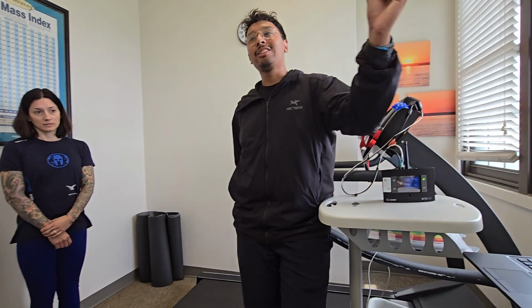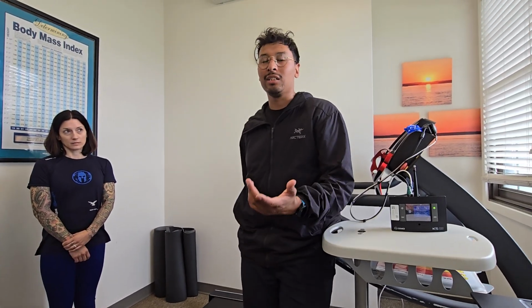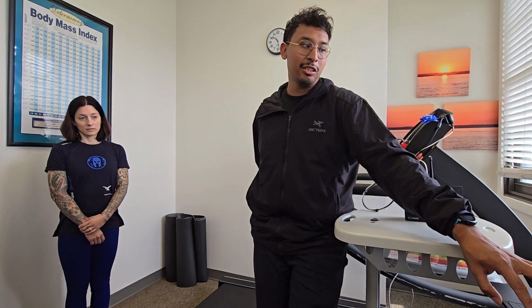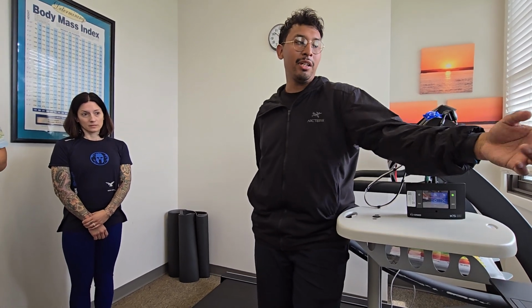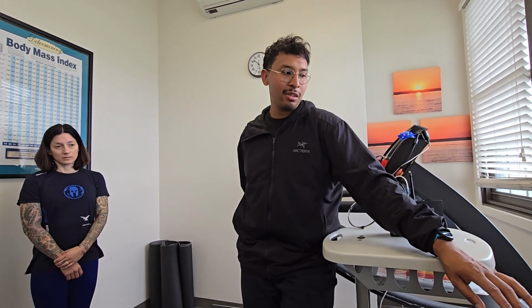The next thing is going to be spirometry. There's exercise flow volume loops. Usually I only see them at PFT clinics. I don't know if you guys will ever do that, but you can. You would just have to input the spirometry here, and then from then on, during the test, you'd be able to do exercise flow volume loops.